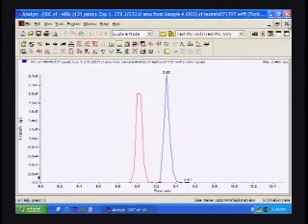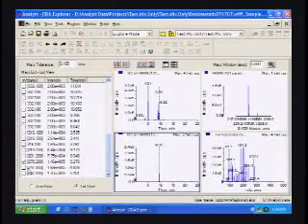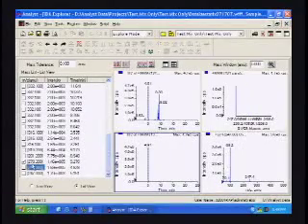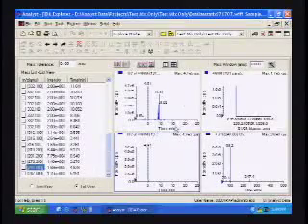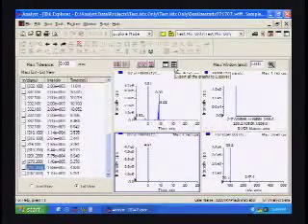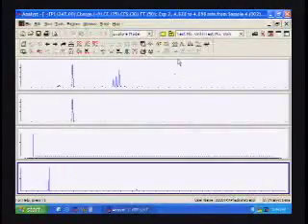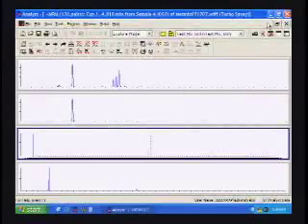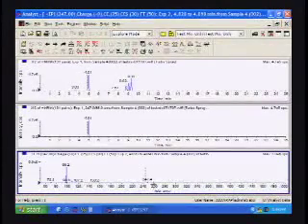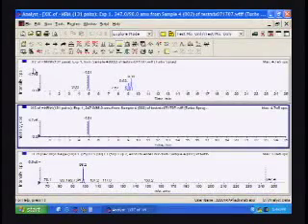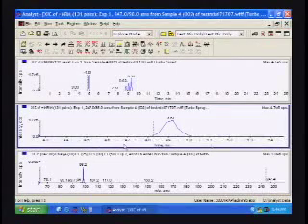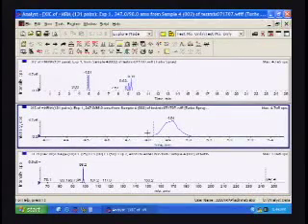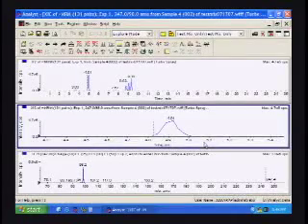Finally, we look at the last compound, the lowest one in the list, which is 247. 247 to 98 is mepivacaine. Mepivacaine is an internal standard that we use for virtually all our analysis within the laboratory. What we're looking for here is just overall system suitability. We're very used to seeing mepivacaine, so if it looks small or broken up or the chromatography looks bad, then we know something may be wrong with the system. It's our final check to whether or not the test mix is okay.